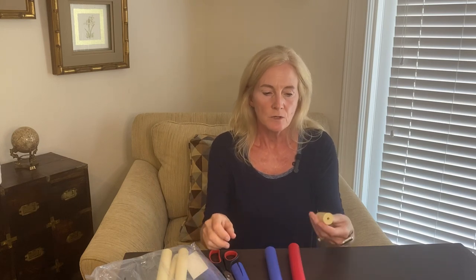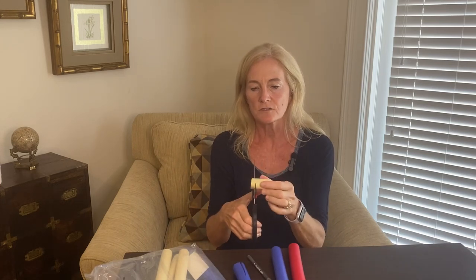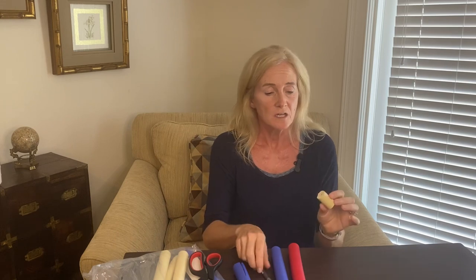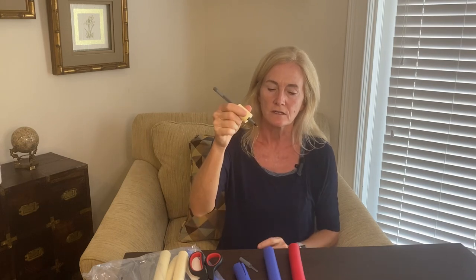The handle just needs to be a little bit bigger so that you don't have to grip down as hard, so that you're able to control it more easily without forcing through your joints or causing pain. I would take the smallest bore and use it maybe over a pen or a pencil. I just took household scissors and cut it — it cuts right through, it's nice soft foam, it's very comfortable, and you can wash it with soap and water if it gets dirty. We just slide this over top of the writing device — the pen, pencil, or marker — and slide it down to a comfortable fit so I don't have to grip down as tightly.